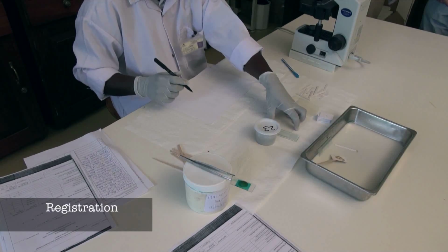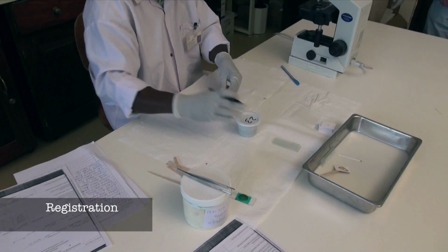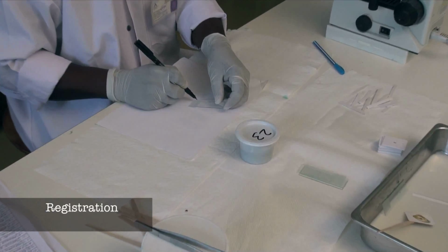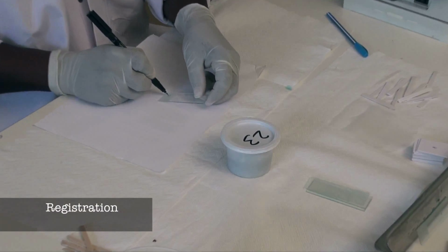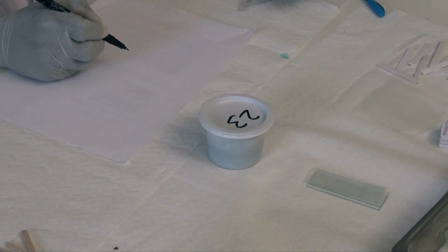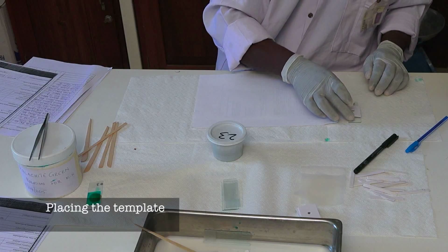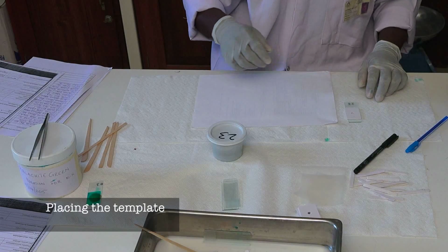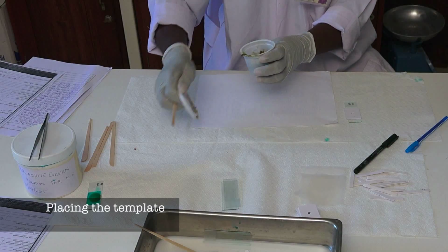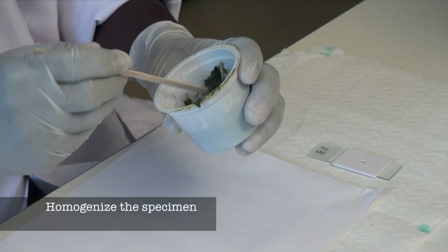Select the container with the specimen, the corresponding recording form, and one microscope slide. Using the marker pen, copy the container identification number to the microscope slide. Place the template in the center of the microscope slide. Open the container with the fecal specimen to be analyzed and homogenize it.